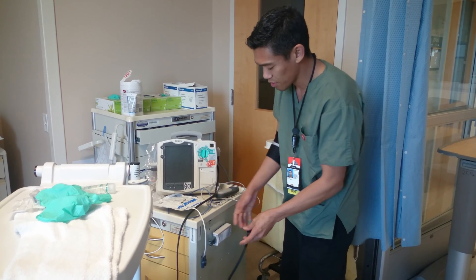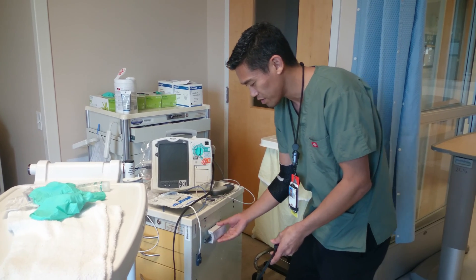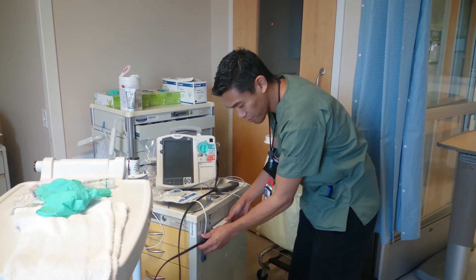Right now we're using the pacer cart, but on the crash cart it's on a little platform right to the right side of it. Plug it in — it only goes on one way.